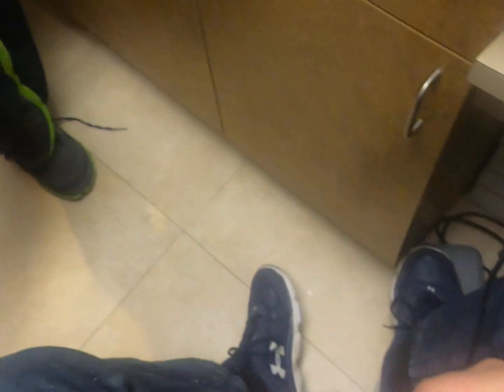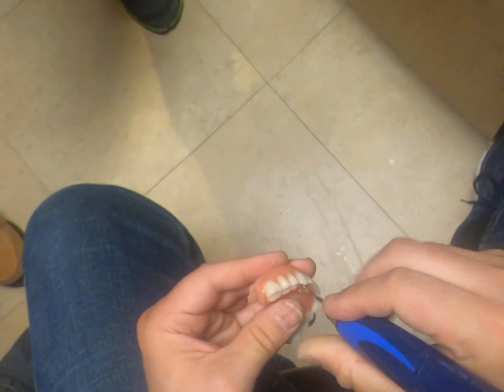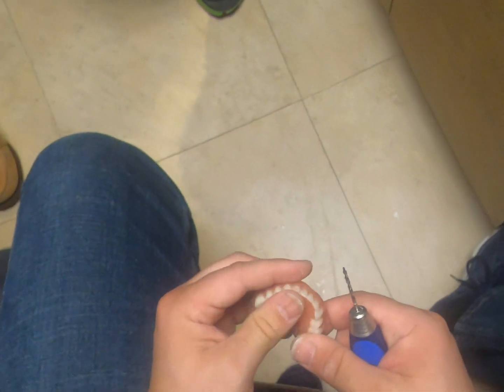I can't overstate the advantage to doing it this way — it's the quality of the provisional that you're able to produce. It's good for the patient at the time of surgery, but more importantly it's going to facilitate everything downstream. If you provide them with a really nice provisional, it's just easier for the lab to design something that meets your and your patient's expectations. Have your provisionals ever broken? Oh sure. Like the ones that had bigger holes? It's always been related to restorative space.